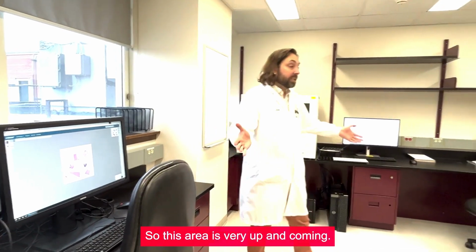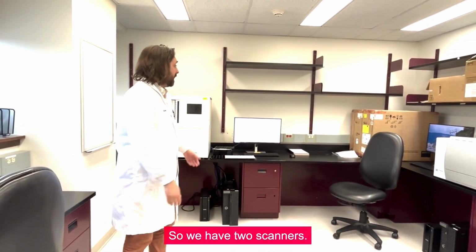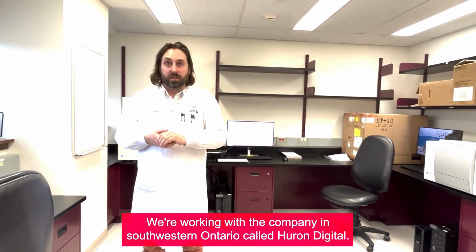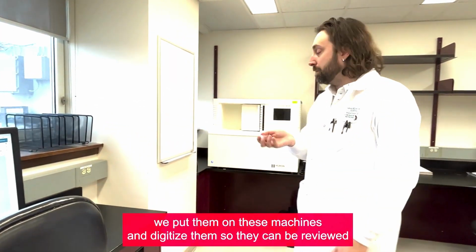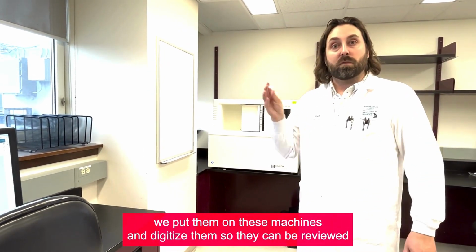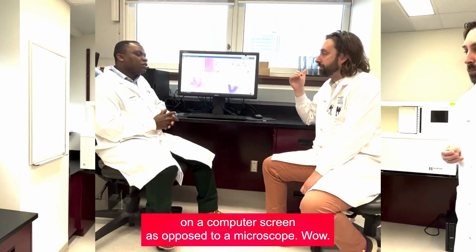So this area is very up and coming. This is our digital pathology area. We have two scanners. We're working with a company in southwestern Ontario called Huron Digital. Once the slides that are made come through the department, we put them on these machines and digitize them so they can be reviewed on a computer screen as opposed to on a microscope.